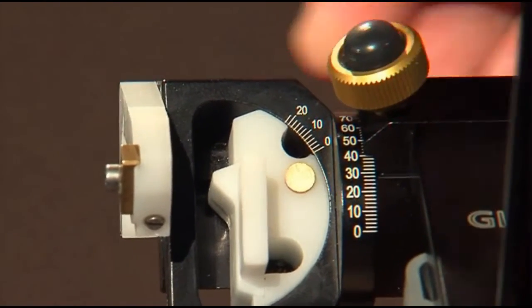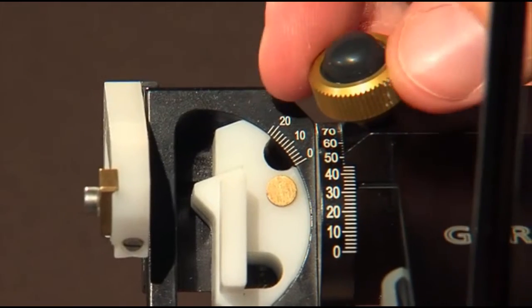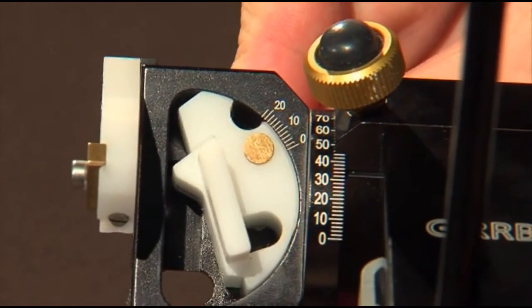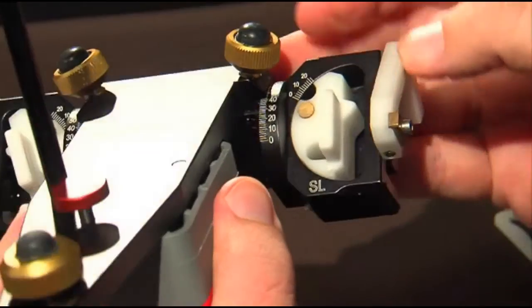The screw should be slightly loosened. Make the adjustments. Tighten the screw again. The transversal condylar inclination is set at 18 degrees and with a white Bennett insert. On the other side, put in the black insert.